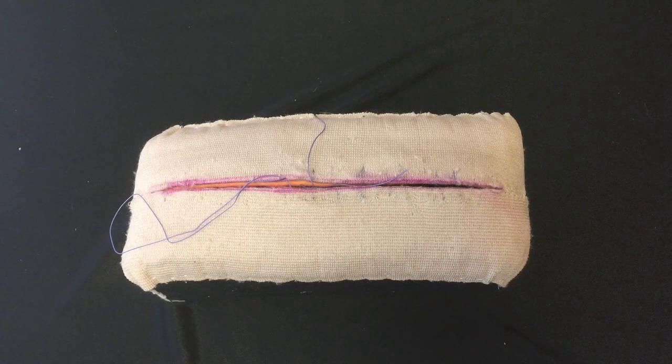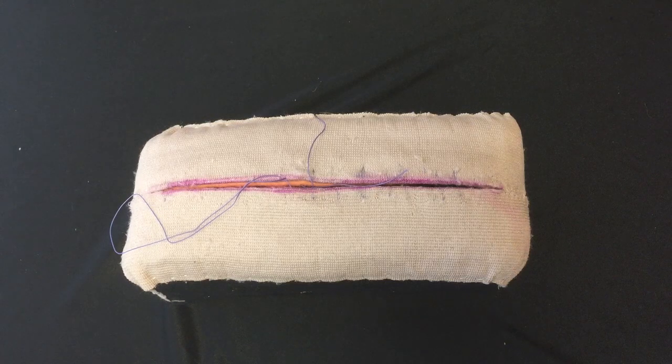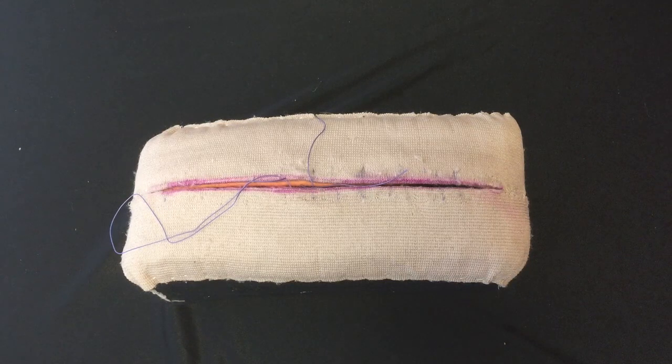It doesn't matter which hand you tie with, it's the same principle so do whichever one is more comfortable with you. For me I've been using the left hand so that's what I'm used to.